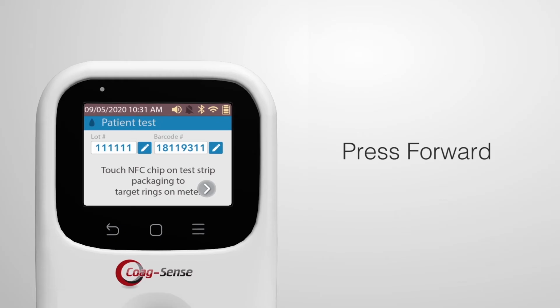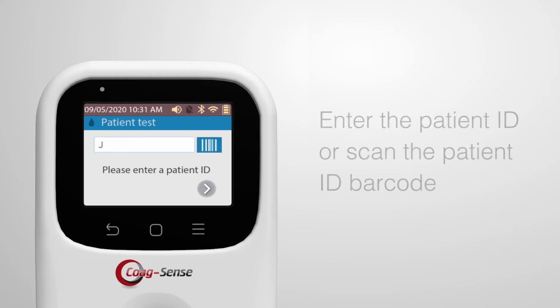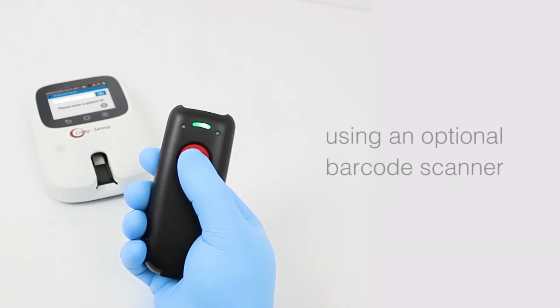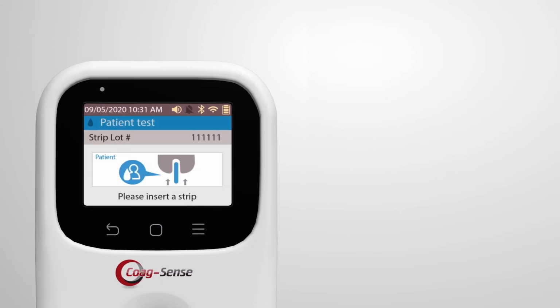Then press the forward button. If the patient ID feature is enabled, enter the patient ID or scan the patient ID barcode using an optional barcode scanner. Press the forward arrow button. The screen will now display the message to please insert a strip.